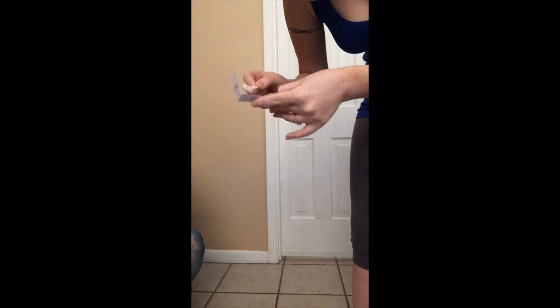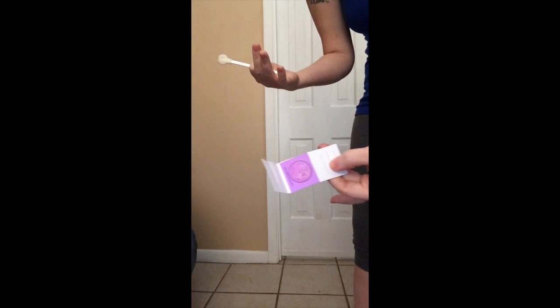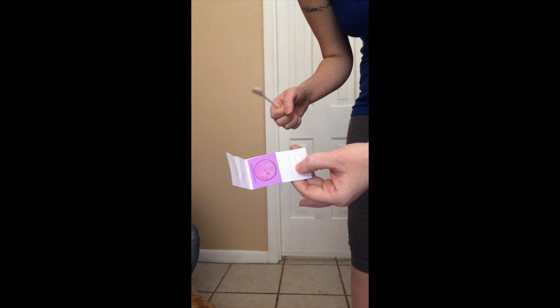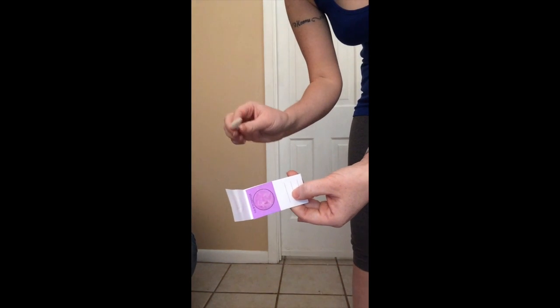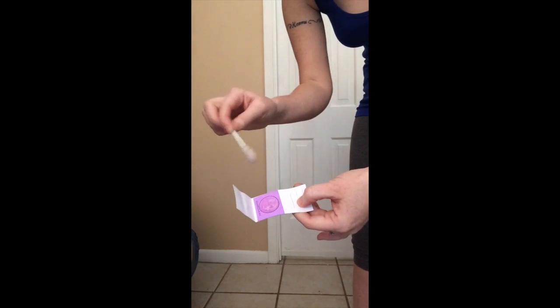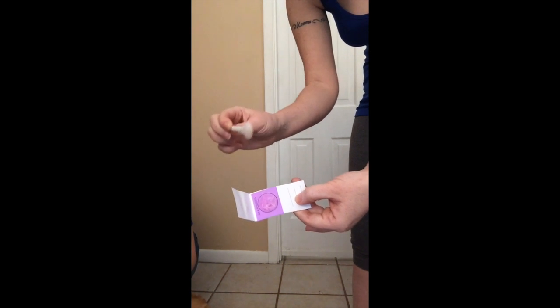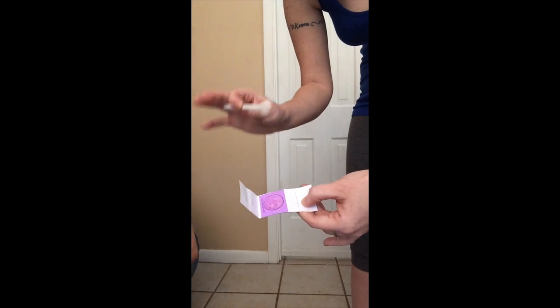I have a little piece of hair hanging off of it. I'm trying to just fill up the entire circle — and really that's it. Then you're going to put it somewhere so that it can air dry for an hour, then place it inside an envelope and mail it back to them. Be sure to keep your swab back in the little envelope just in case the circle doesn't turn white after the hour of drying, because if it doesn't you'll want to redo it and you don't want it contaminated.